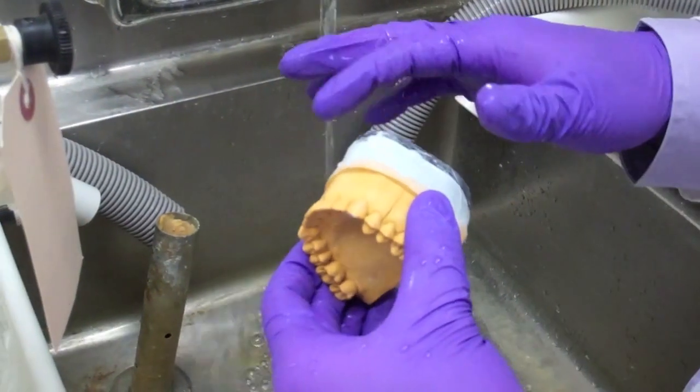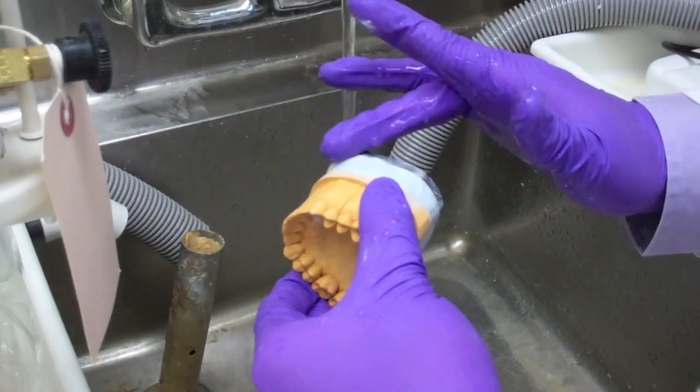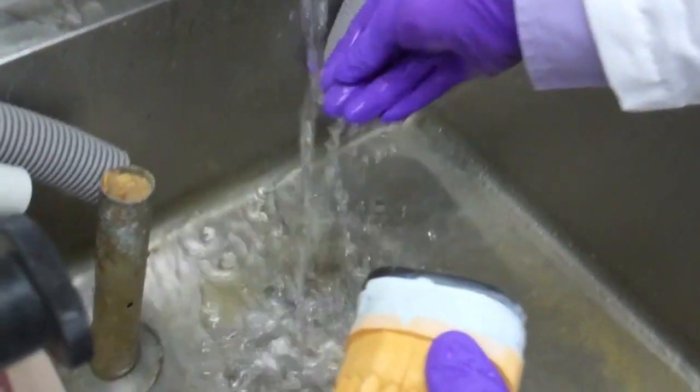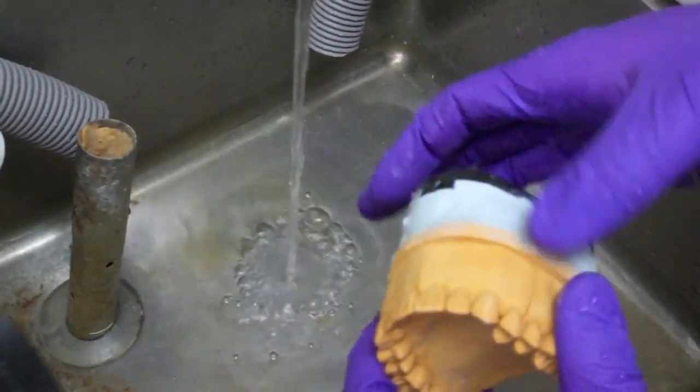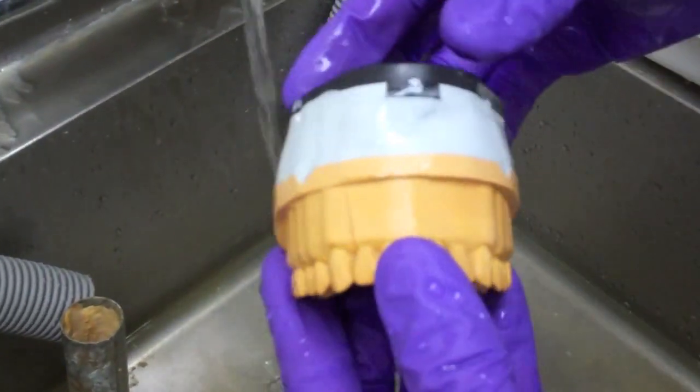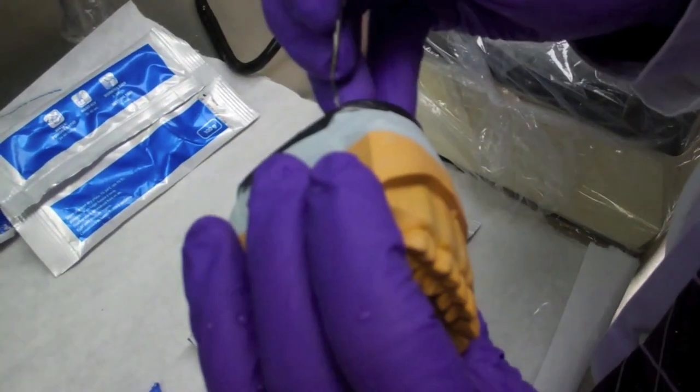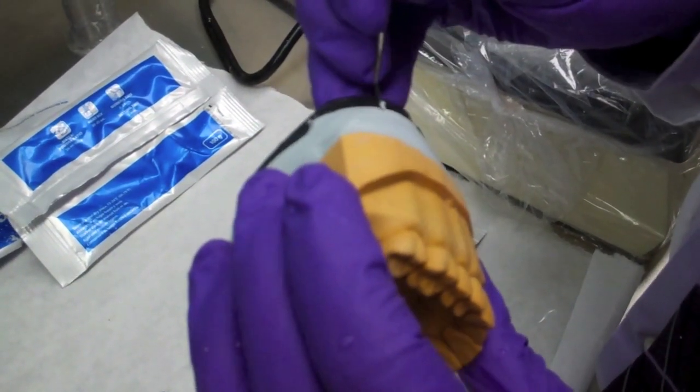A good tip would be to use water once the stone begins to set. By using your finger and water, rubbing the stone will give it a smooth effect. A sharp tool may be used to scrape off any excess left.